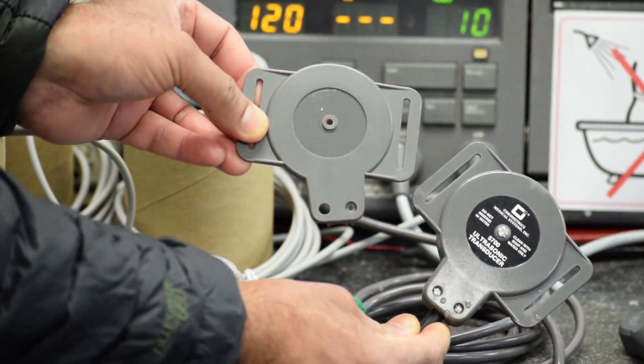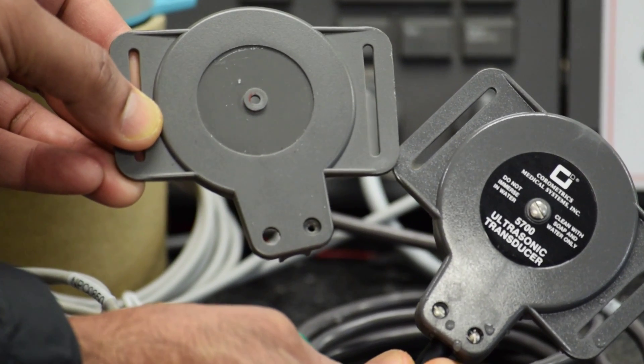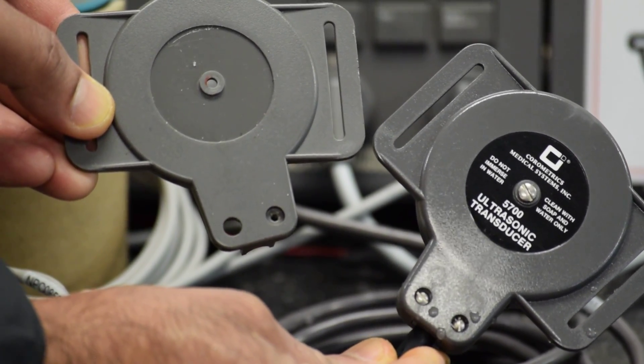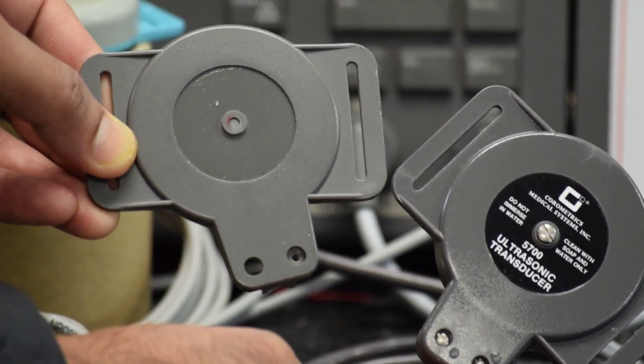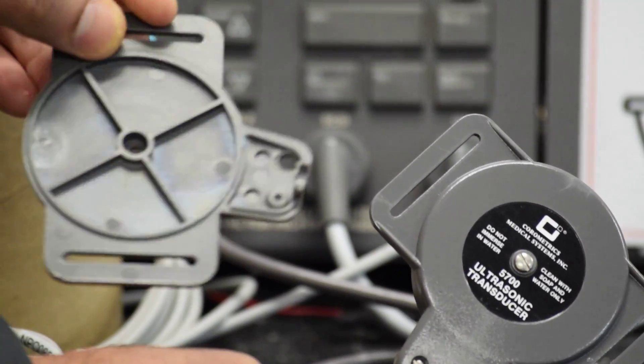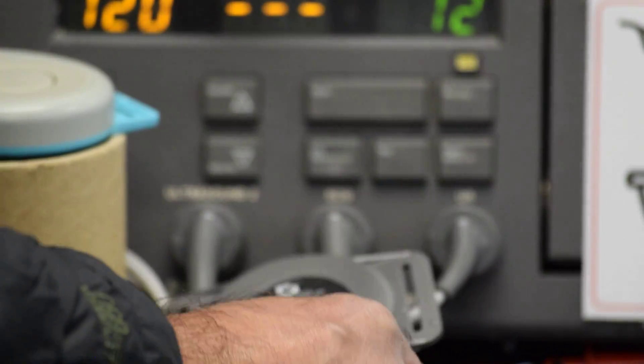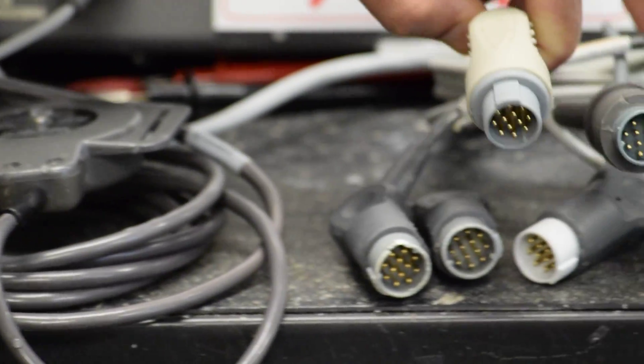These are the aftermarket parts. You see a hole there where the screws are used to fix the top case with the bottom case. The other side of this part, in order to show you, these are the aftermarket connectors which create problems on the fetal socket.